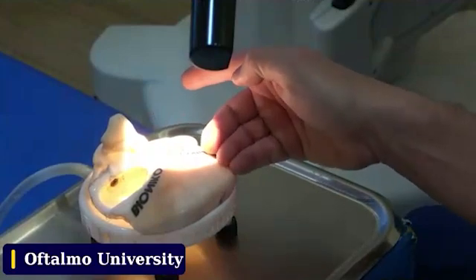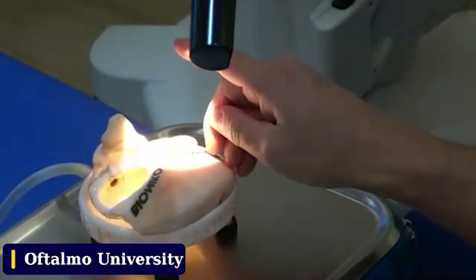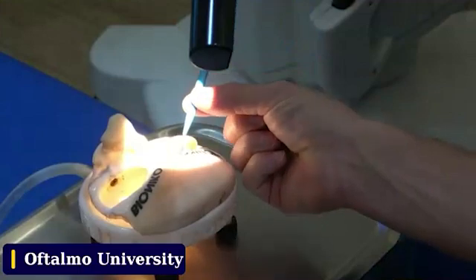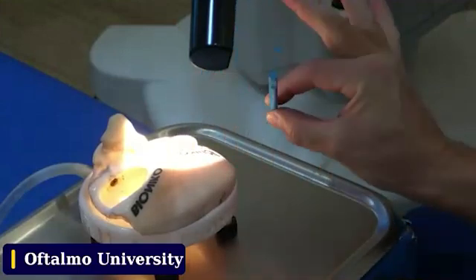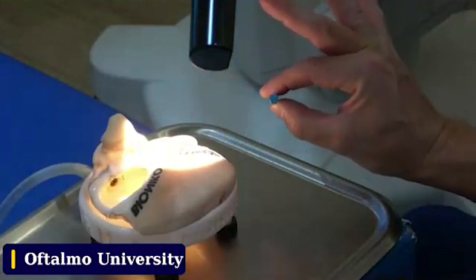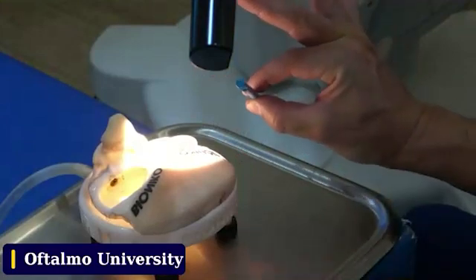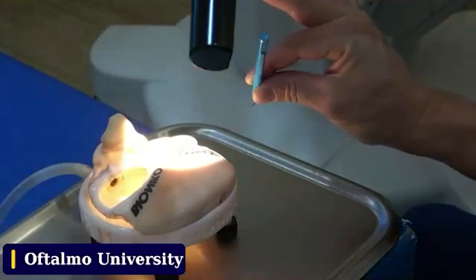Only the fingernails touching — look at my wrist, it's vertical, not horizontal. Then the crab claw comes: grab the instrument one third and two thirds, 180 degrees, because that's the movement you want. You need to be strong in these muscles and grab it like a crab claw.